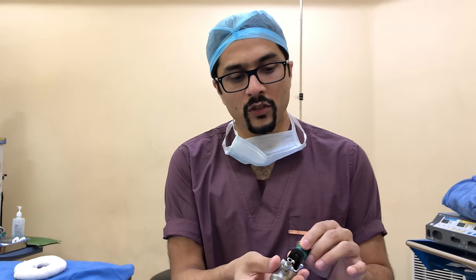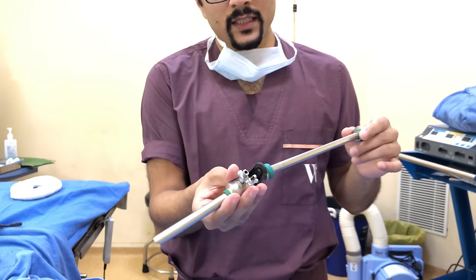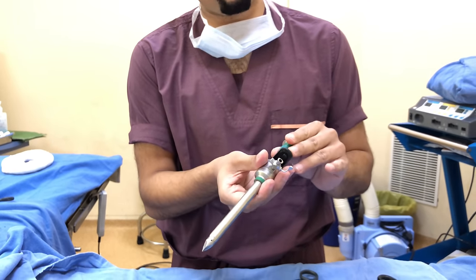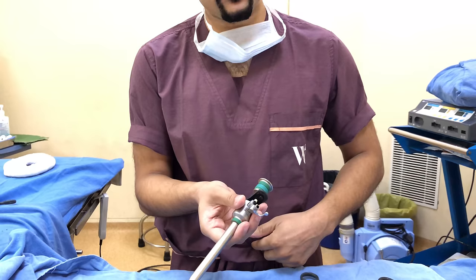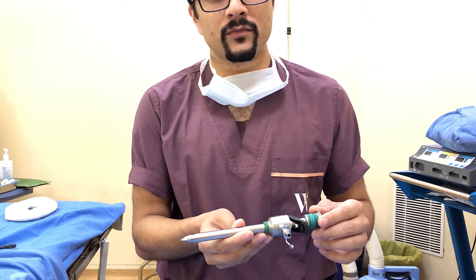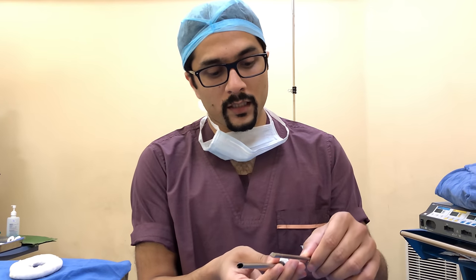Once you put in the trocar, you can introduce instruments through it. Just in case, while putting in the trocar, if there is a bowel injury, you need to immediately convert to open surgery — but keep the trocar in position so that you can localize the site of injury.